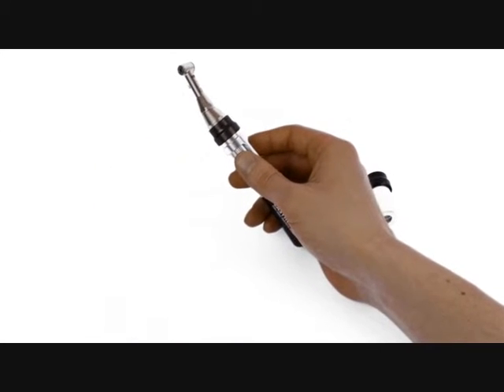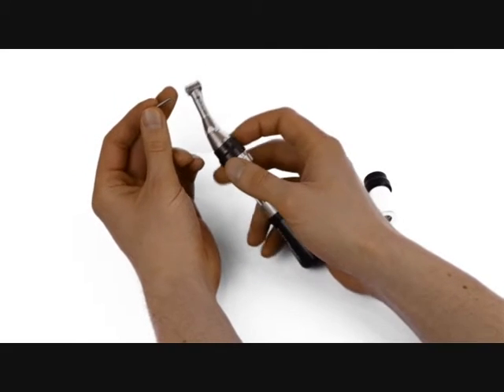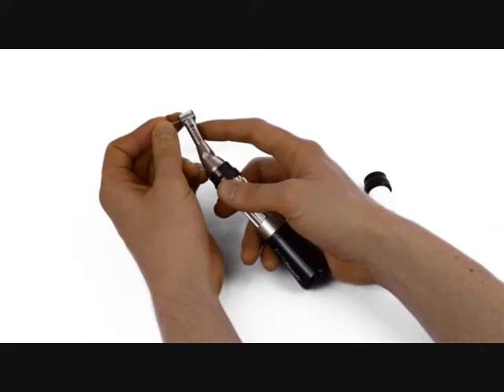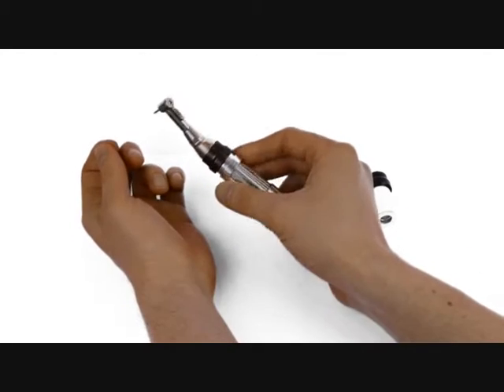Any implant driver can be connected that has a latch grip connection, so for any system that you wish to use. Simple connection like so and you're good to go.